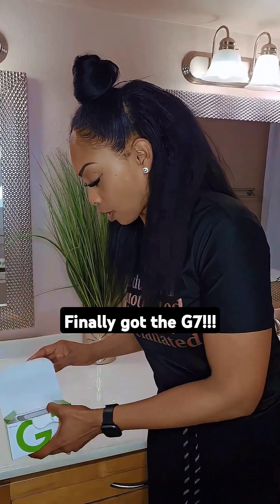I finally got the G7! I've been ready to switch this G6 out for a long time. So here we go — little kid on Christmas. We ain't trying to save no record paper, we just gonna rip this thing and bust it wide open.